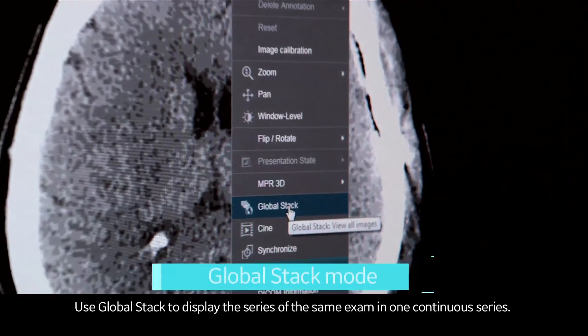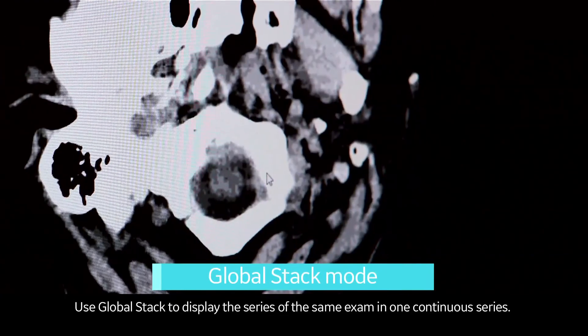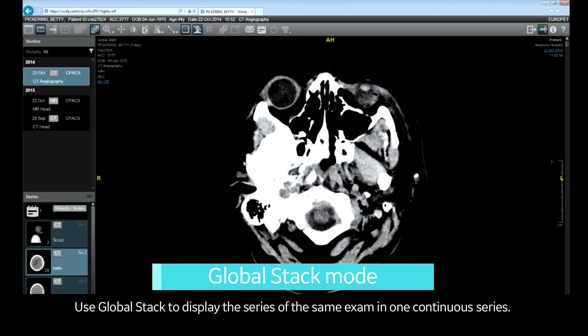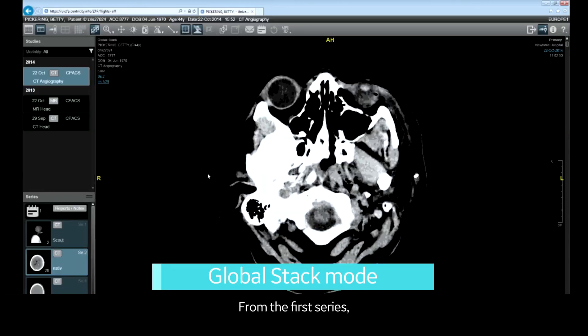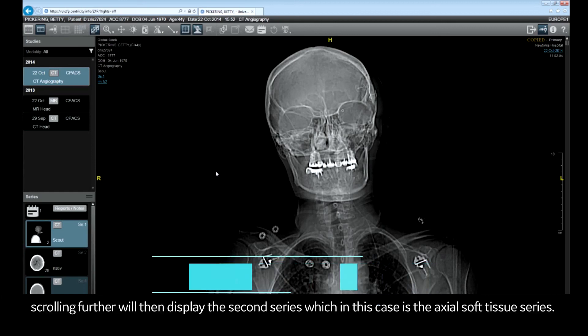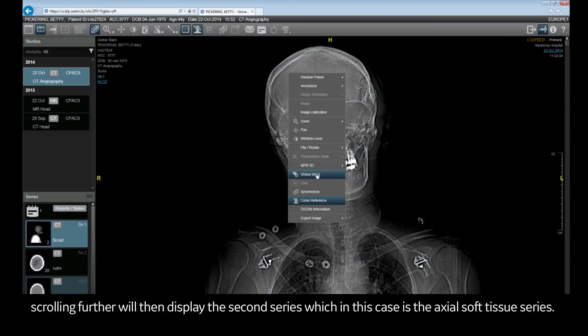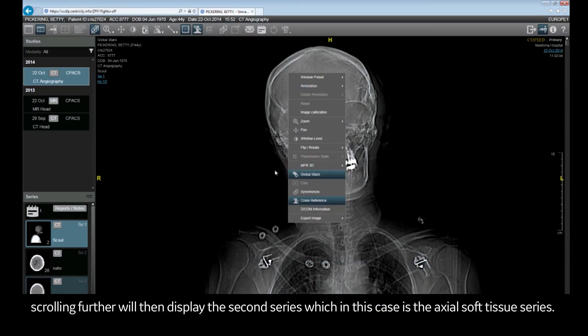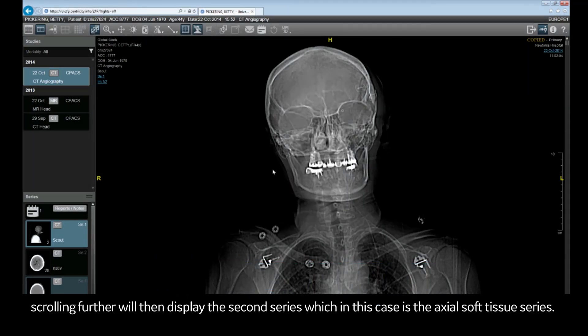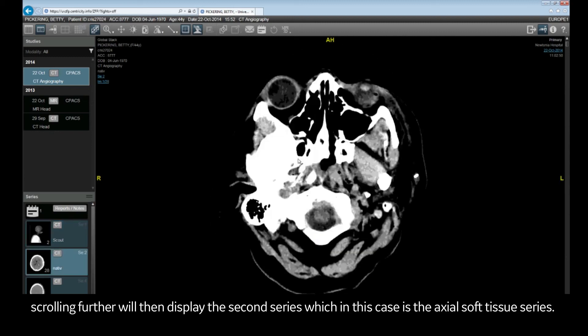Use GlobalStack to display the series of the same exam in one continuous series. From the first series, scrolling further will then display the second series, which in this case is the axial soft tissue series.